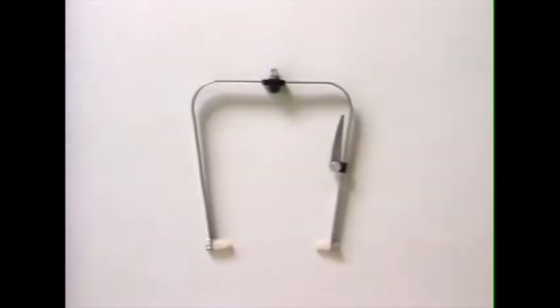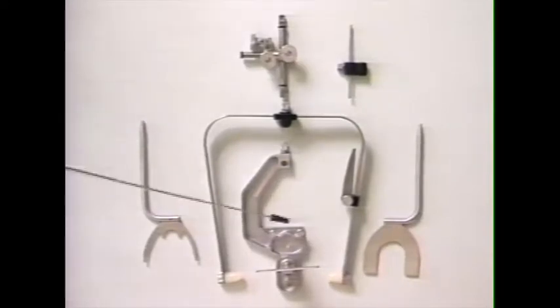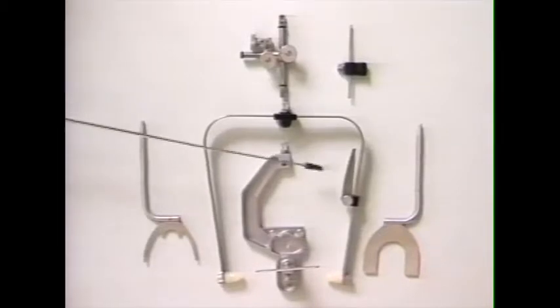The Hanau Spring Bow is a self-centering ear bow. It allows the dentist to rapidly and easily obtain a face bow record and transfer it to the articulator. It can also be steam sterilized in an autoclave. It consists of the spring bow itself, which is an ear bow which springs in and outward to allow placement into the ears. The ear bow also has an axis orbital indicator on it, which allows the vertical orientation of the face bow.